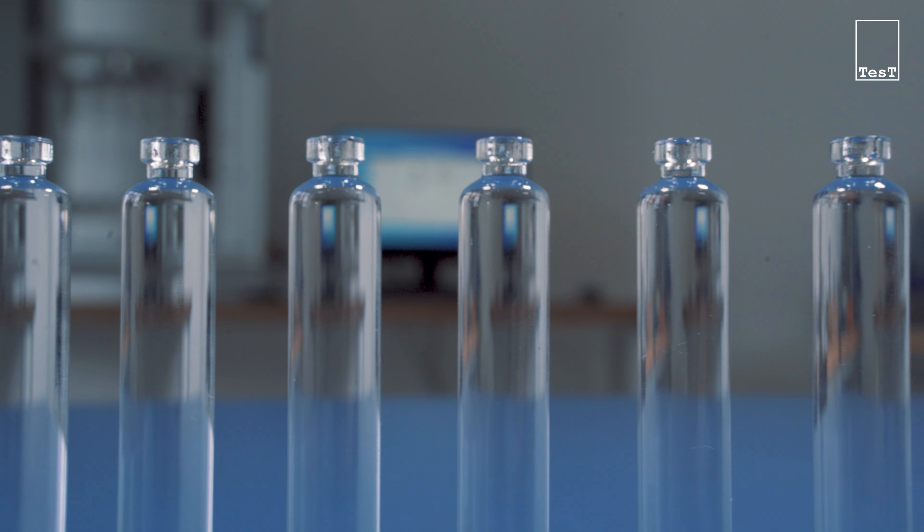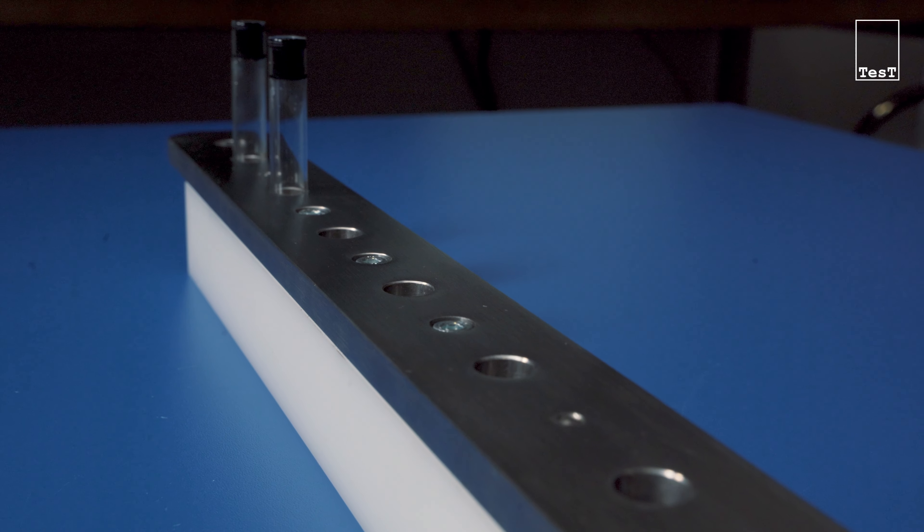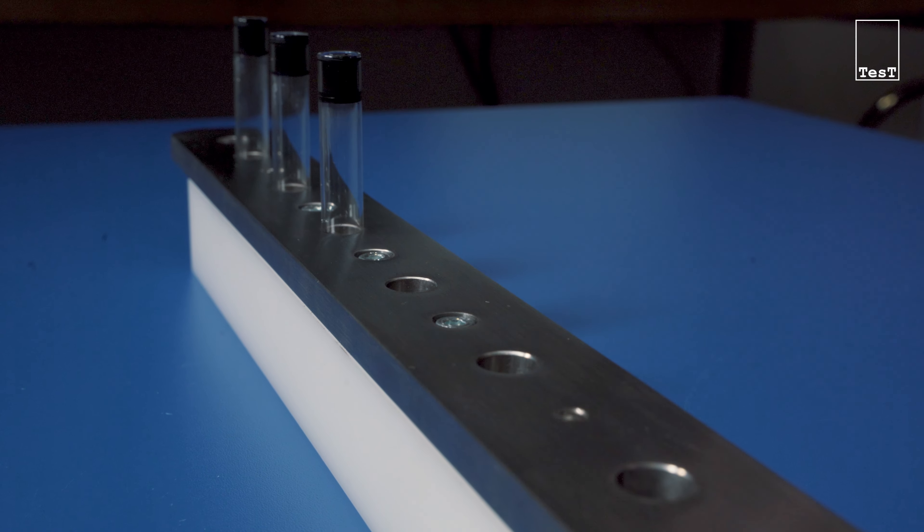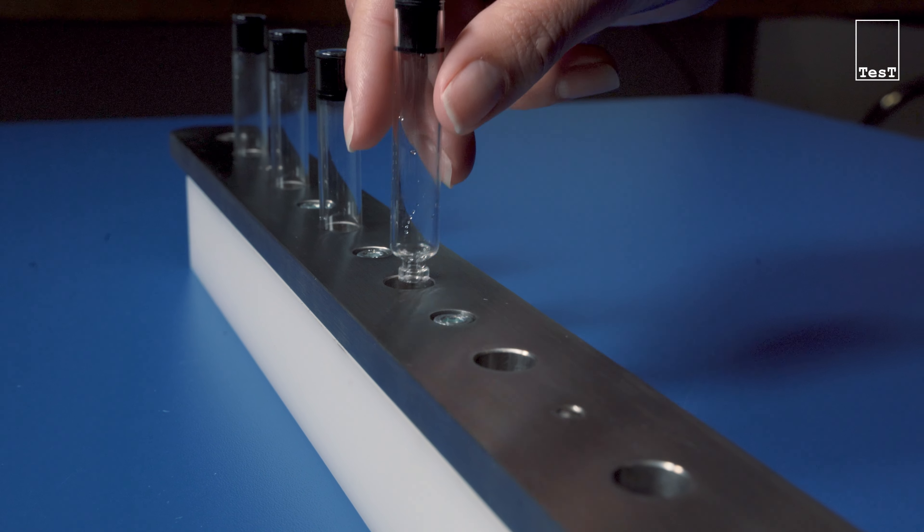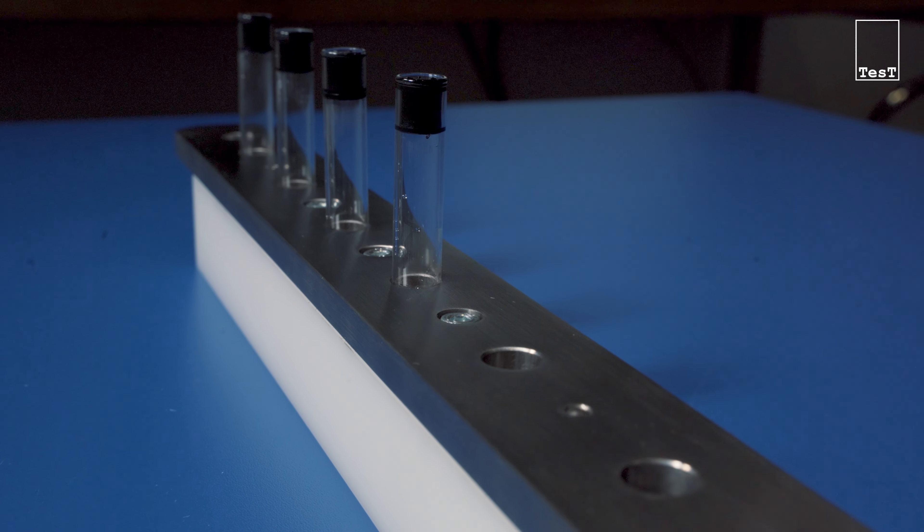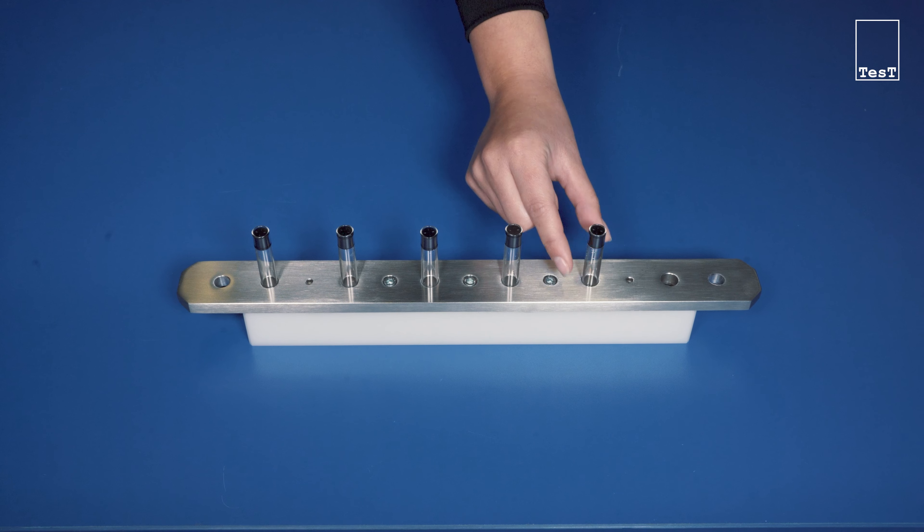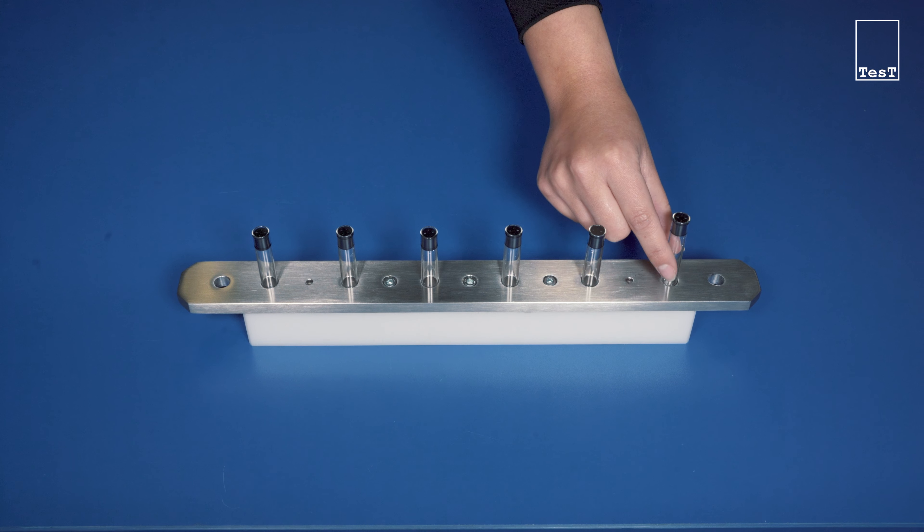For the test procedure, the cartridges are placed inside a tray, which can be equipped outside of the machine. Multiple trays can be used to test different cartridge designs, or to test more of the same model in a shorter time.